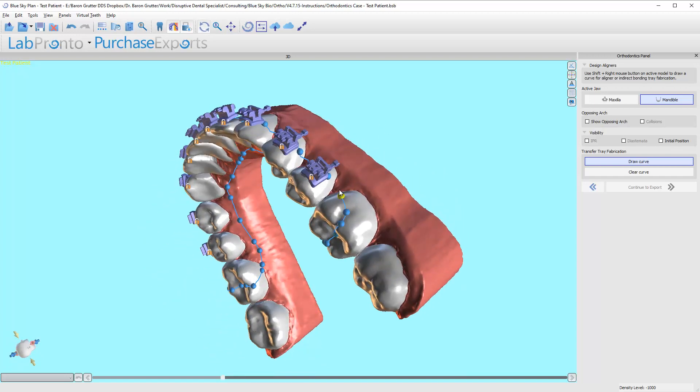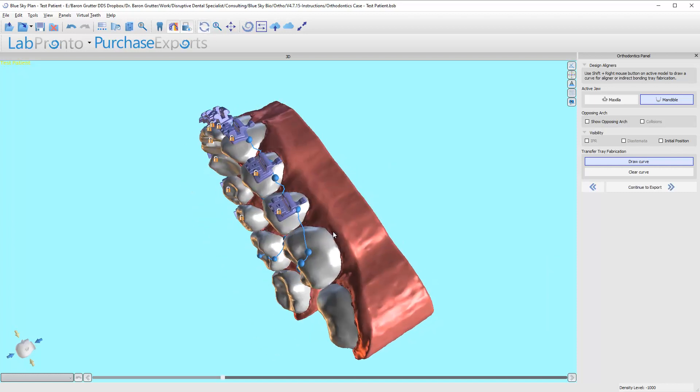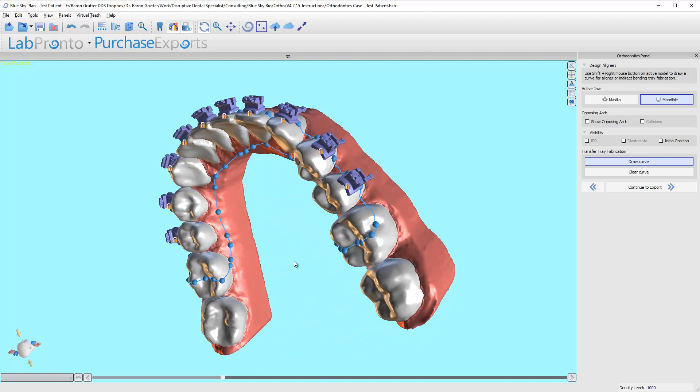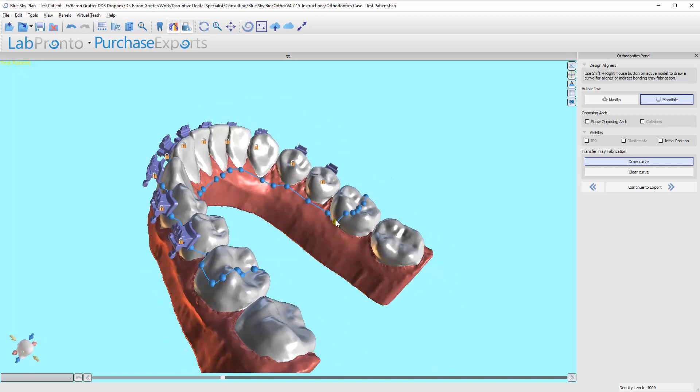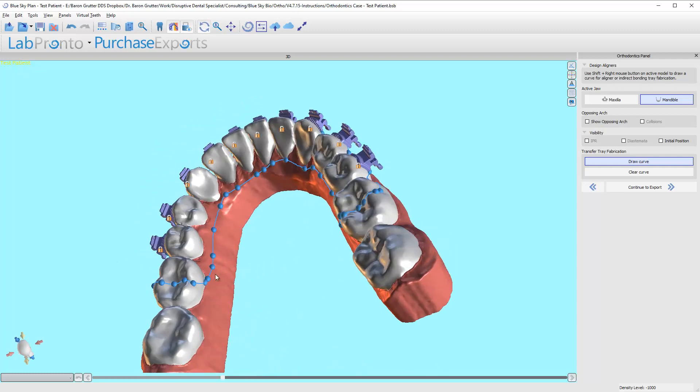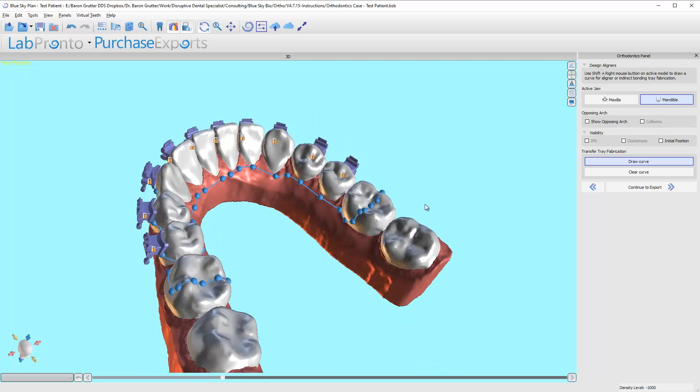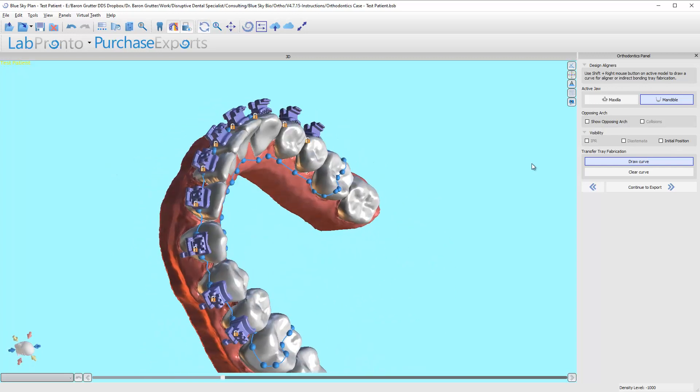I'm just going to grab this node and drag it right on top of that one, and it will merge the two lines. If they didn't connect automatically for you, that's how you do that. I can move these little nodes around one at a time if I don't like the position. If I say, you know what, I went a little too gingival or apical on there, I can move them up. There is no perfect position.